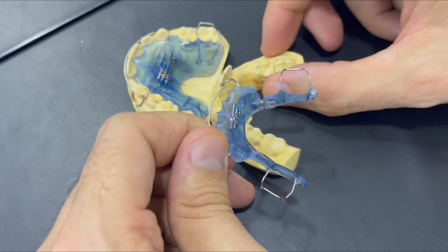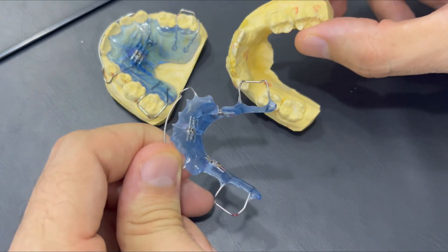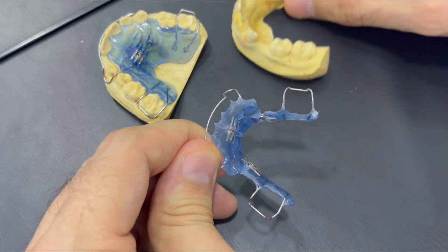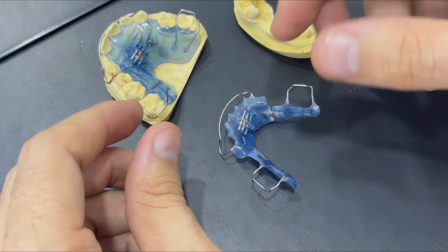We should instruct the parents to leave this device in salty water at least 30 minutes every 2-3 days to keep it clean.